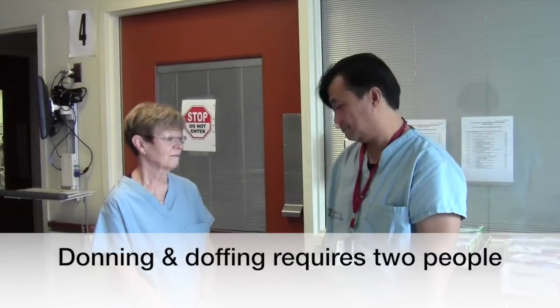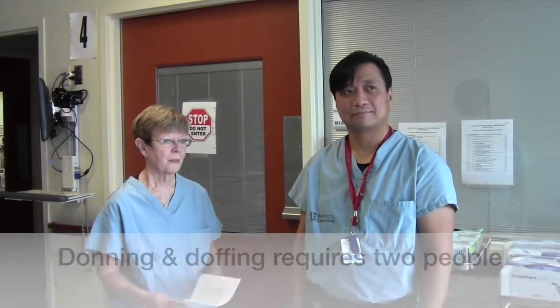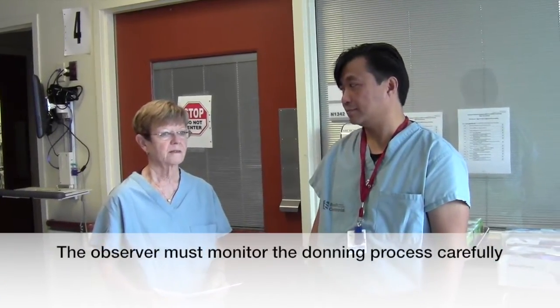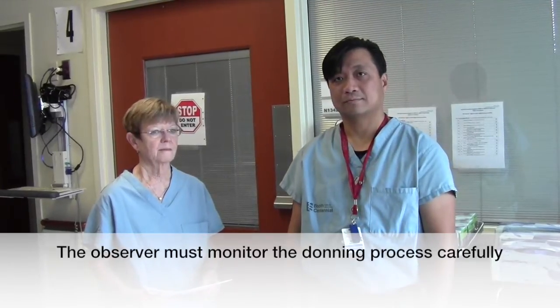Hello, my name is Michael Petzold. I'm an infection control practitioner. My colleagues from the IPAC team, Linda Fittis and Brian Morales, will be demonstrating the procedure for donning and doffing personal protective equipment, or PPE, which is to be used with suspected or confirmed Ebola virus disease cases. Donning of PPE is done in a clean area outside of a designated negative pressure room for suspected or confirmed EVD cases. This procedure must be done before entering and exiting an EVD room.